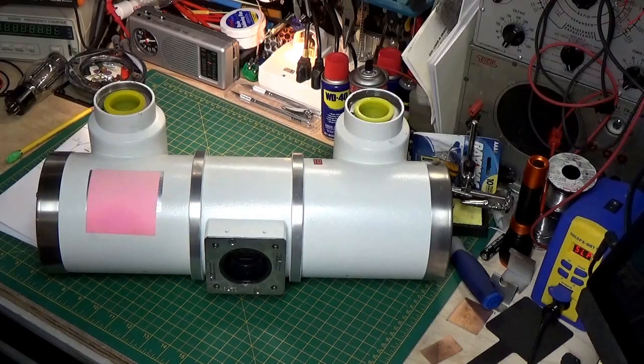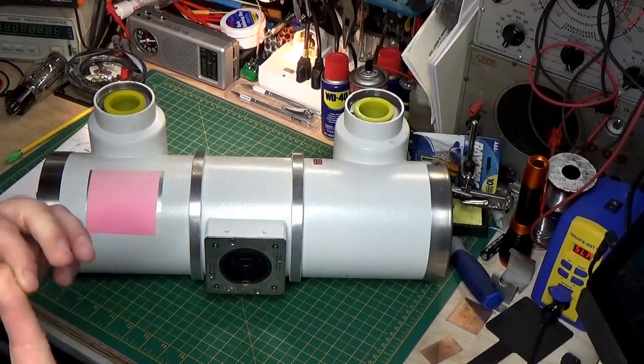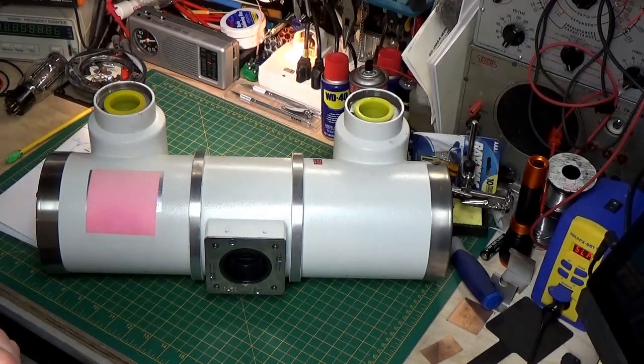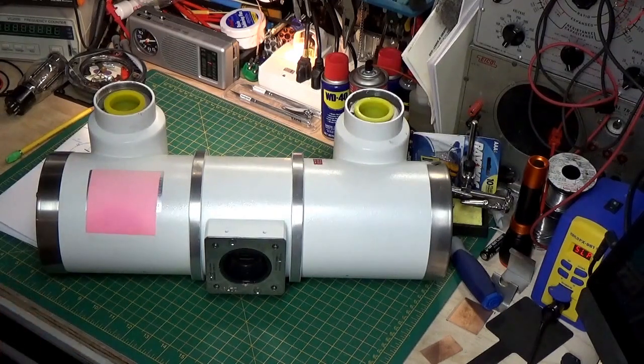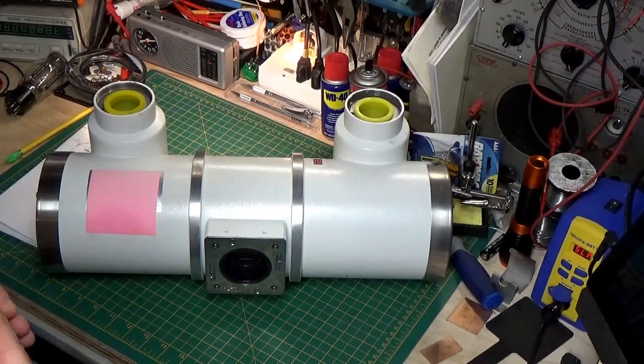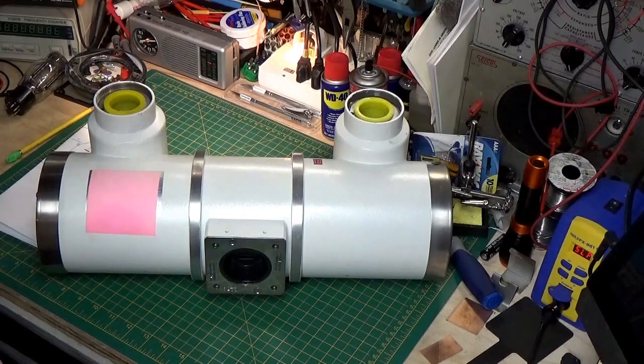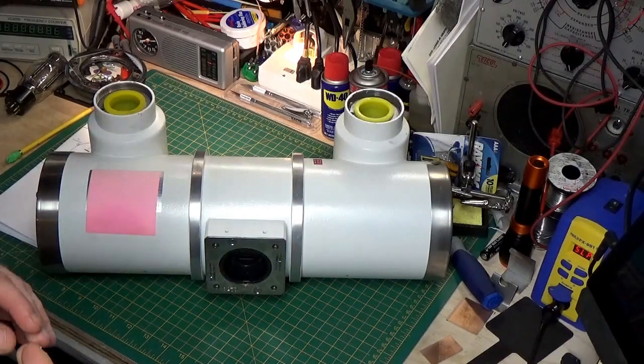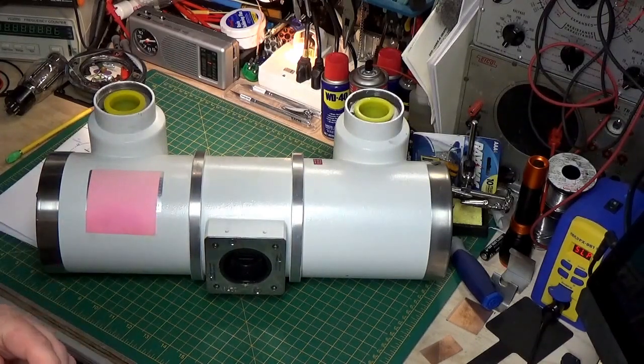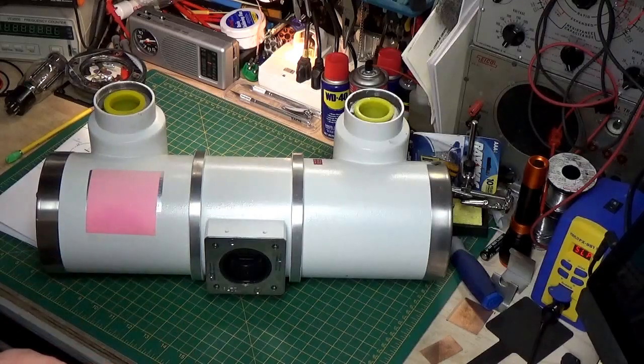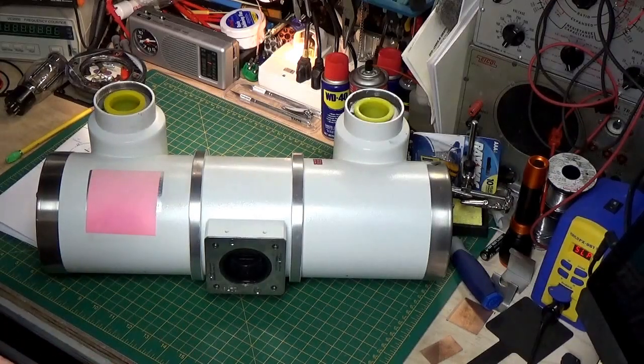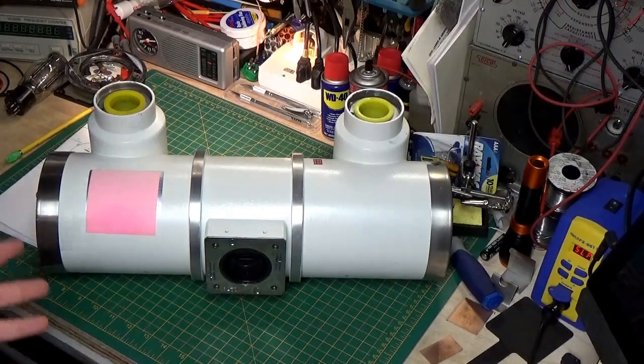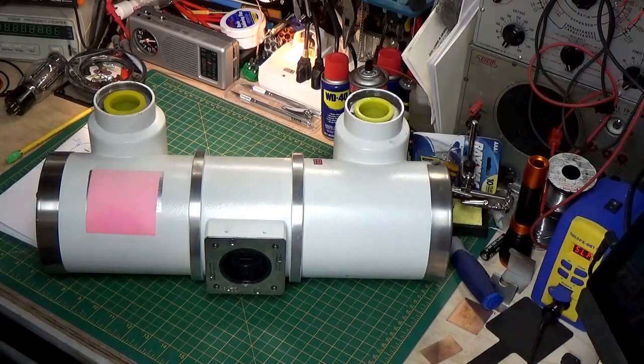X-rays have two properties that we work with. One is the ability to penetrate an object. The other is when the object absorbs the radiation. Now, it's the absorption that we worry about. When X-ray is absorbed, it causes damage to tissue. So, it has to interact with you to be absorbed.